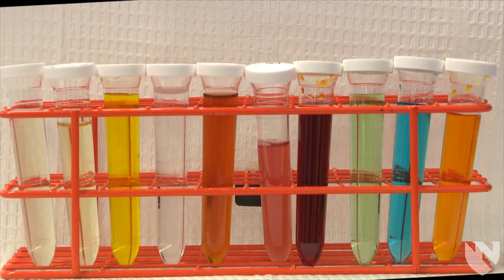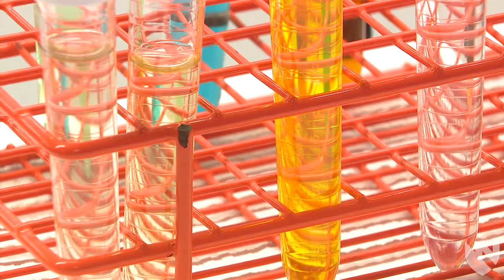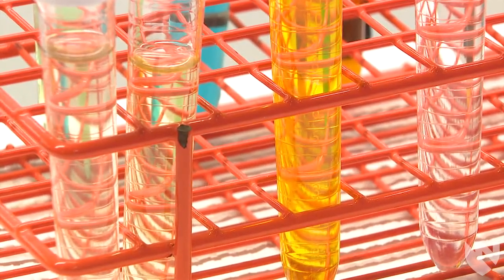The first part of a routine urinalysis involves an assessment of the physical properties, color and clarity. This video will demonstrate how to examine the color of urine.